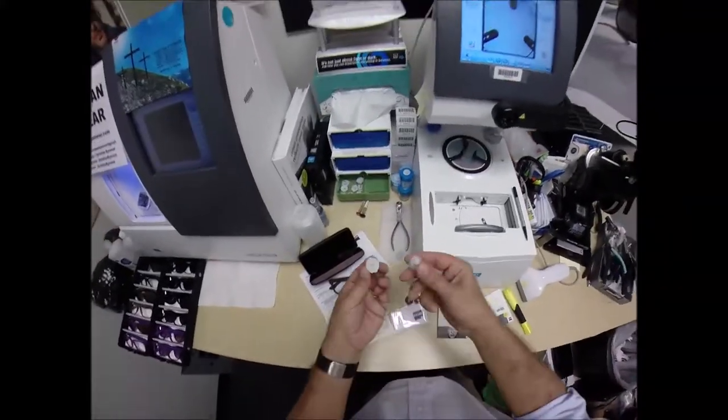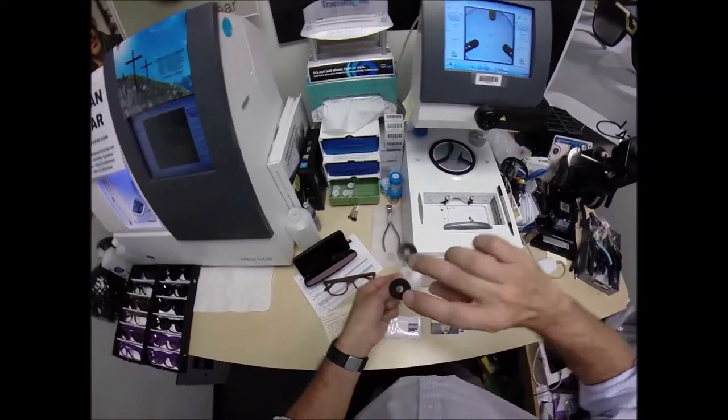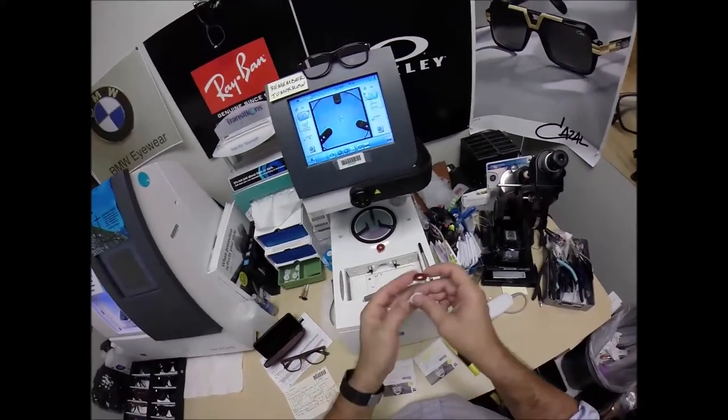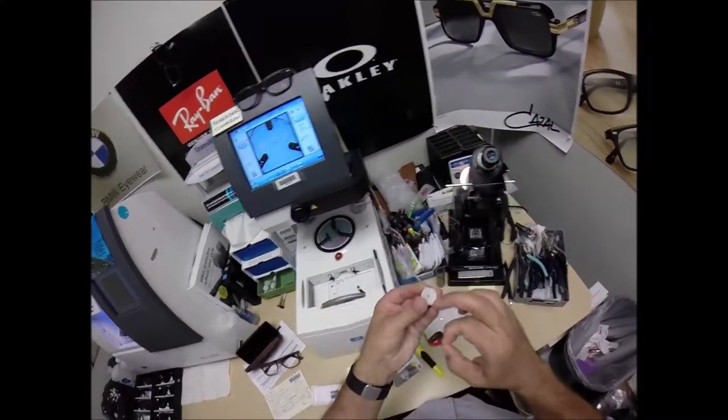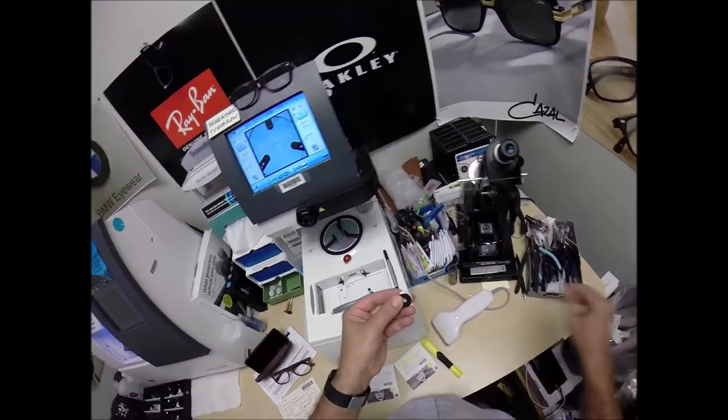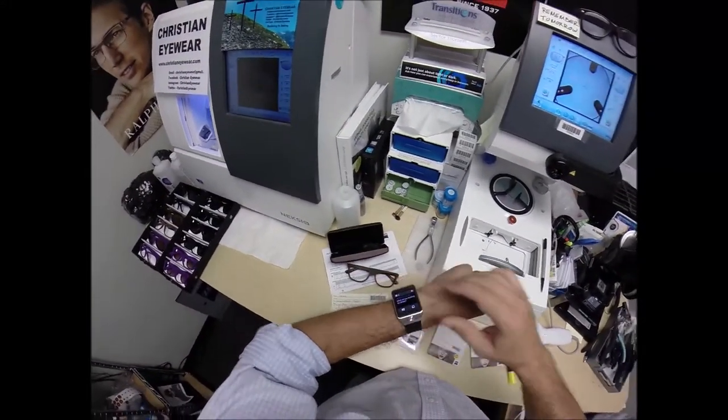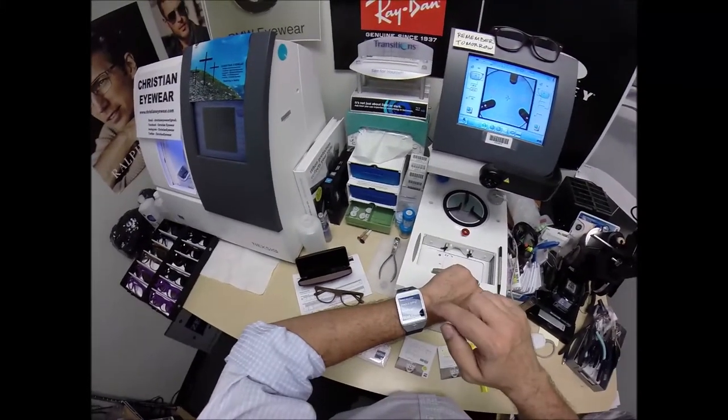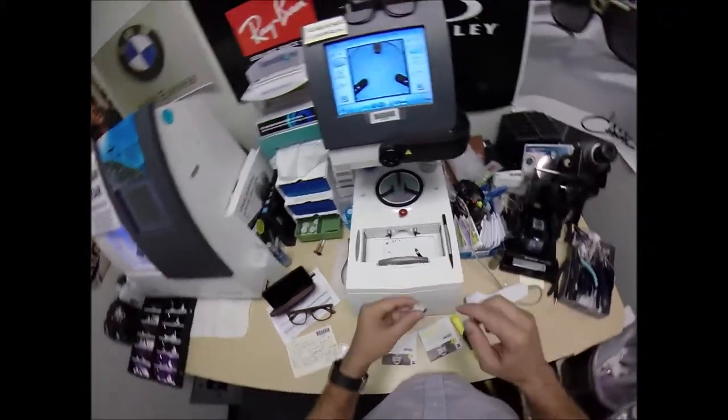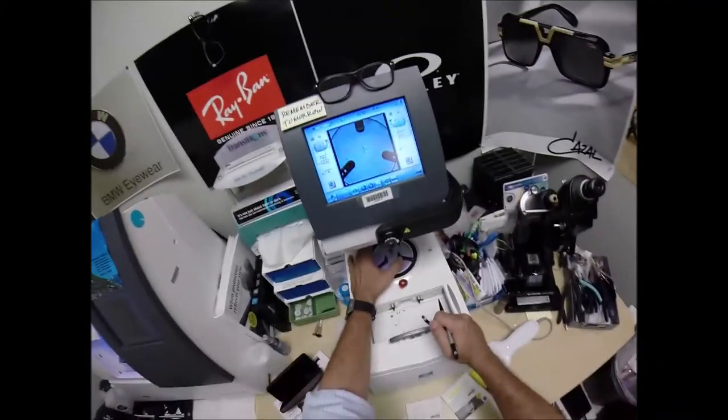Do the same thing. Well, actually, this is a block. I need to attach this to your lens while it is cutting. So I need two double-sided adhesive stickers, of which I've got those here. The black side is the sticky side. I'm going to stick that on the first block. Do the same thing now for the second one. Pull the paperweight to make the black side sticky. Line up the magnet. Hang on. My wife's texting me. What am I thinking for dinner? Let's try this. I'll call you later. Send. We're going to go out for some sushi. How's that? You guys know it before she did.